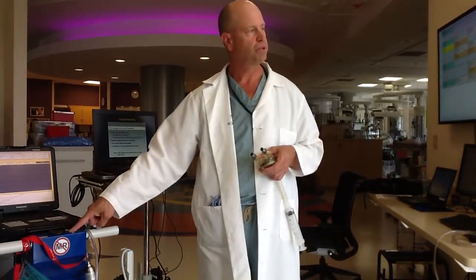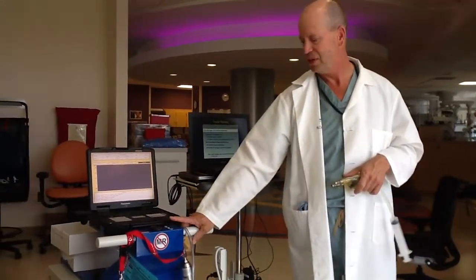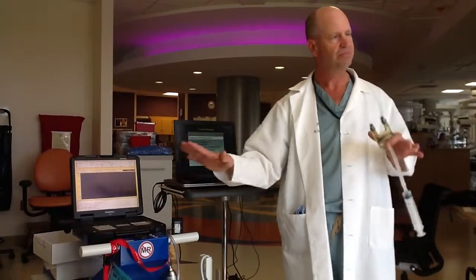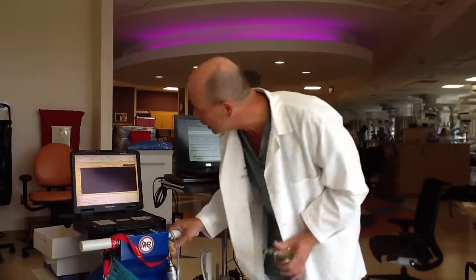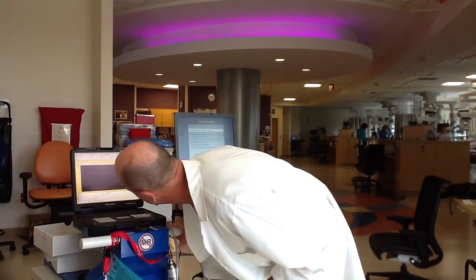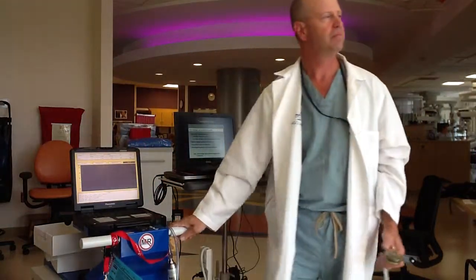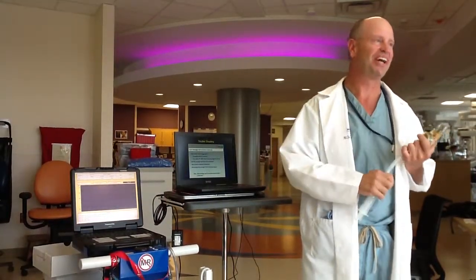You can silence those alarms with the button here — stopping the noise brings everybody's anxiety level down by a huge factor. Get rid of the noise, but troubleshoot the thing. You can read the messages here; the one I just generated said 'pressure fall in system.' The messages are not necessarily very intuitive about what's going on, so reading them — I don't know how much help they're going to be, but you can certainly read them.